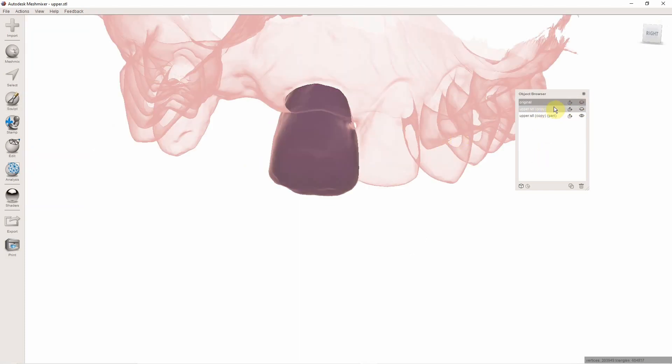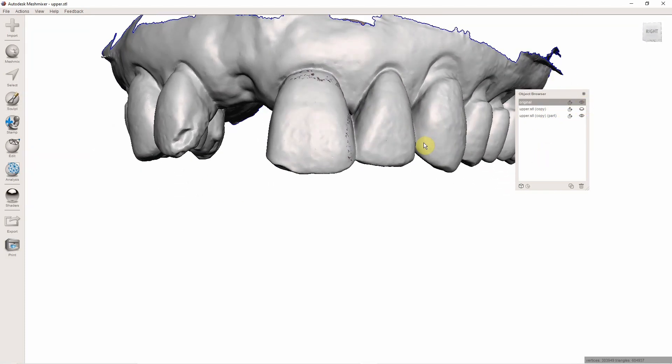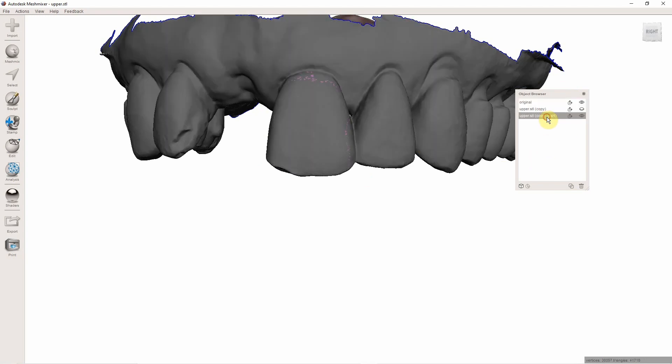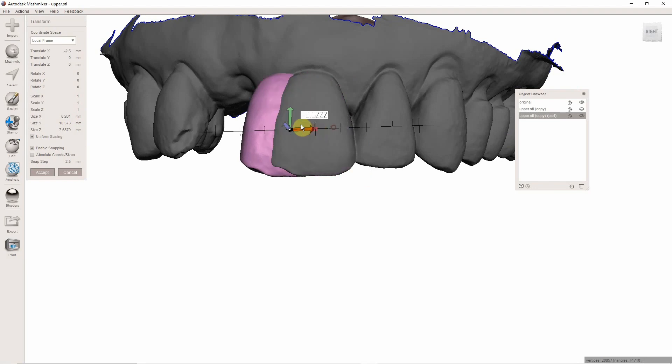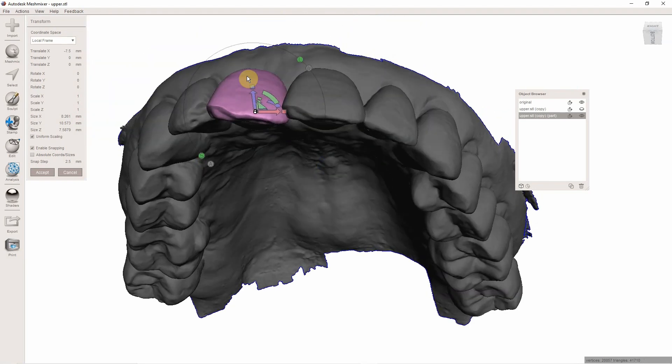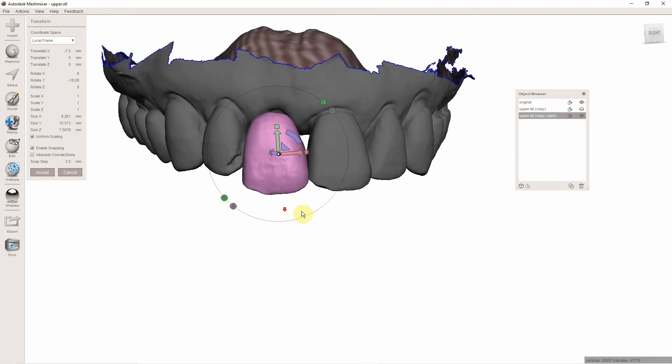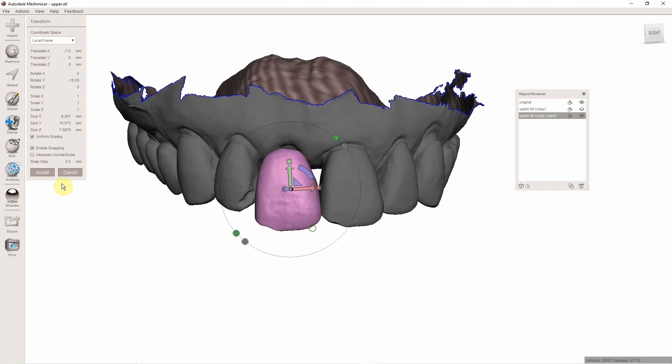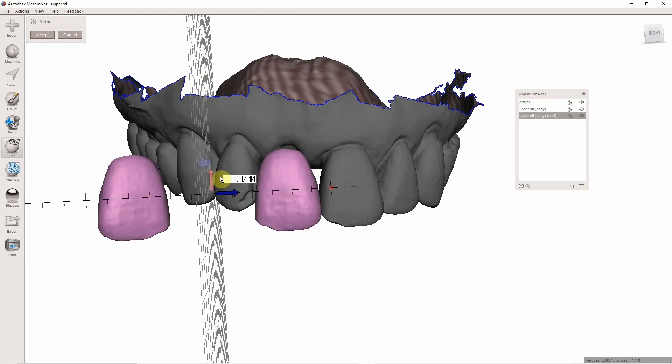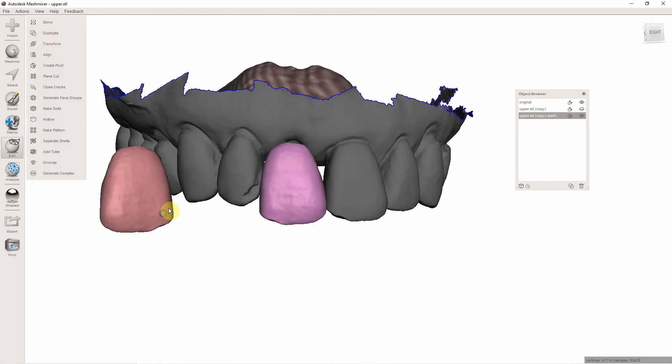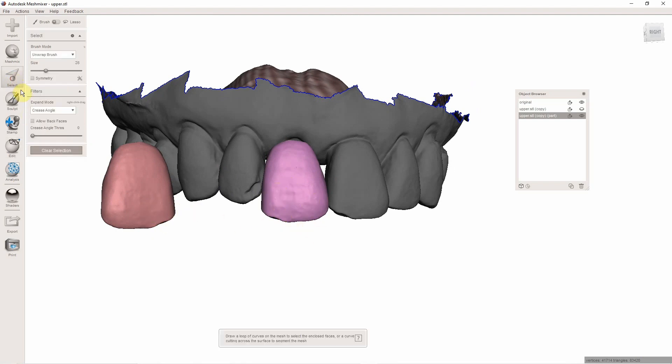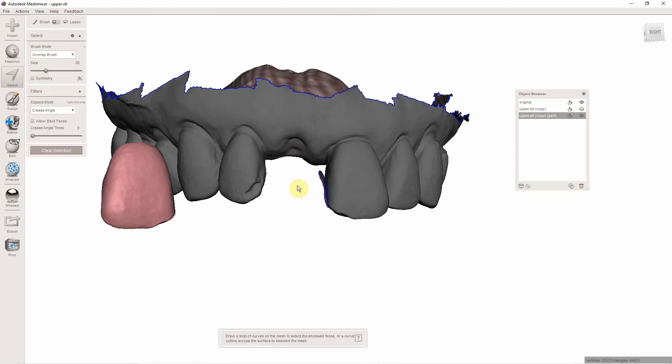So let's put on my original model. And let me go to my tooth and I hit T for Transform. And look at that. Now you're saying, well, it looks like you have two of the same teeth. I get it. But what you could do is you could go to Edit, Mirror, and just drag that thing over and hit Accept. Now I have this, which represents a mirror image and then the original. I need to delete their original. So I'm going to go to Select, double click that original, and just hit X on the keyboard.